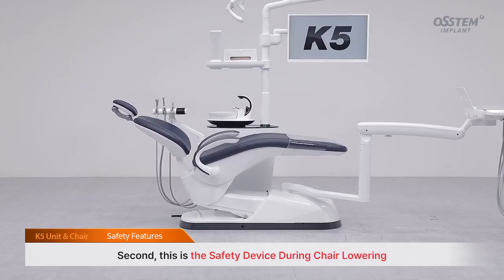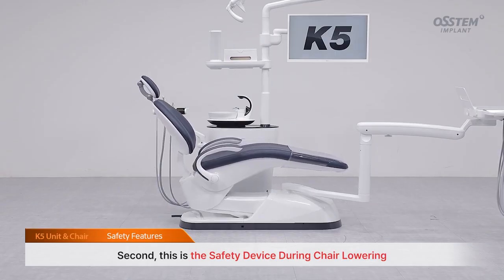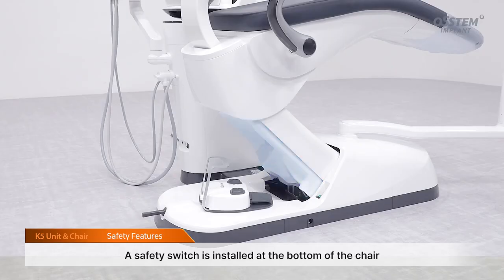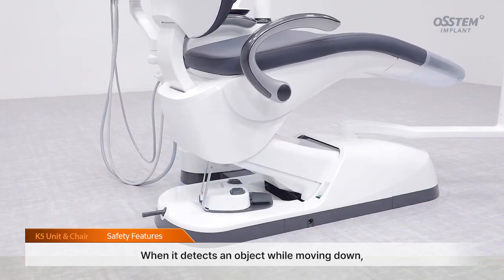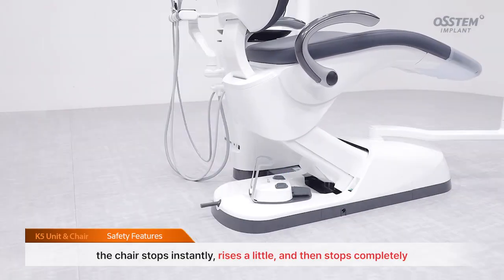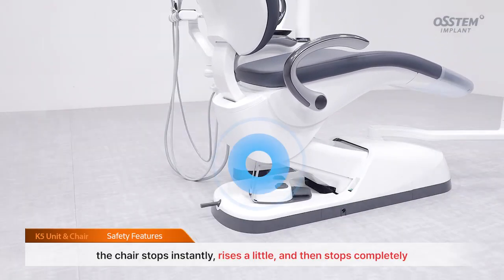Second, this is the safety device during chair lowering. A safety switch is installed at the bottom of the chair. When it detects an object while moving down, the chair stops instantly, rises a little, and then stops completely.